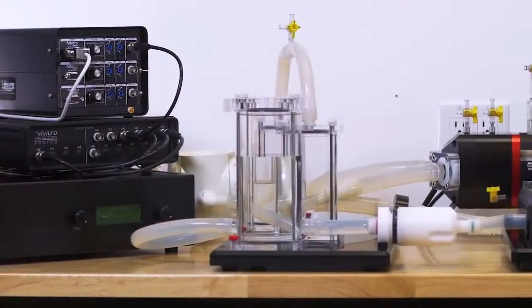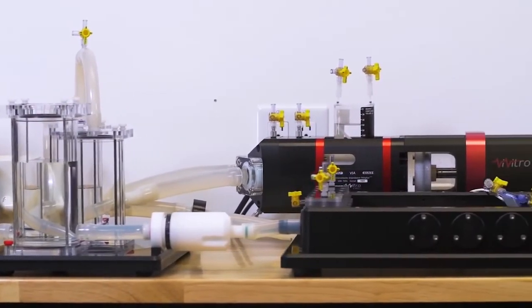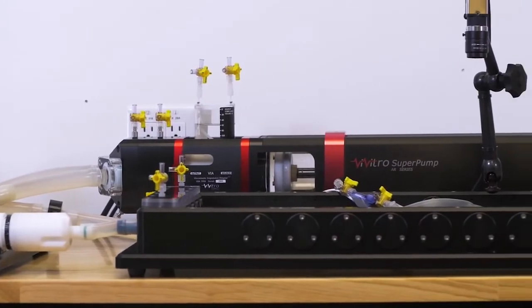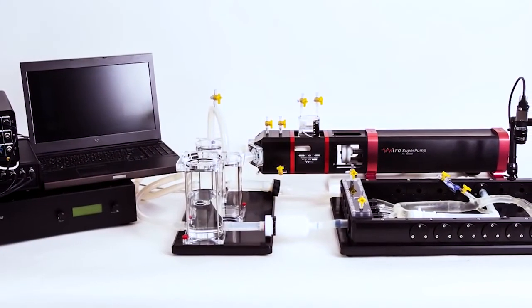The Vivitro Endovascular Simulator shares many other Vivitro product elements. This provides a low-cost upgrade path, reuse of common parts, and ease of use.